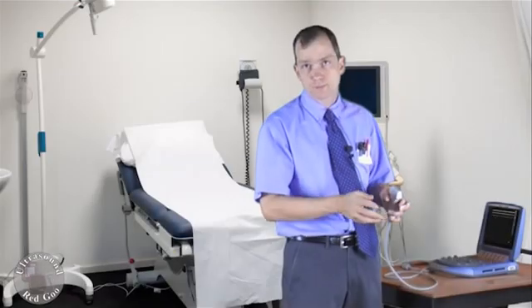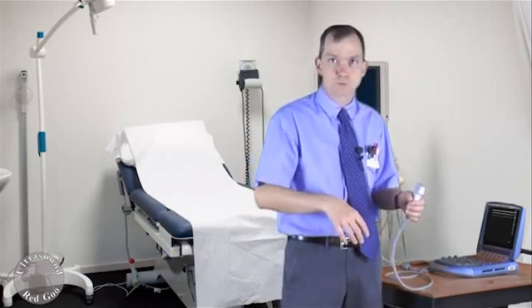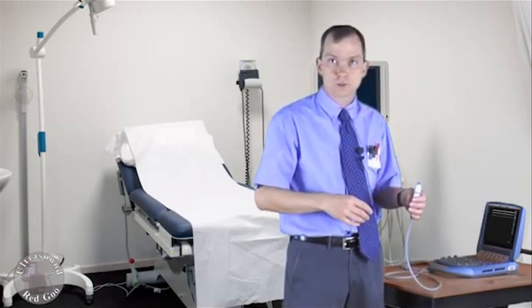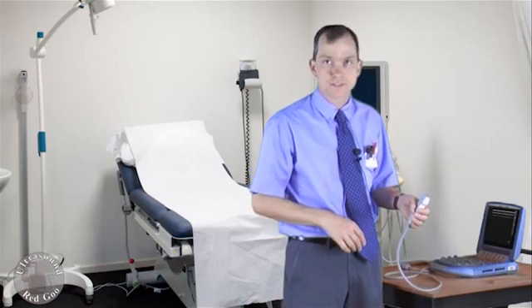Now this basic test should be performed any time you take a machine or probe out of storage. It might be that probe that you never use if you have multiple probes on your POCUS machine. Or any time you take a new purchase of equipment. It could be new or refurbished equipment. You want to check it out and see what you got.